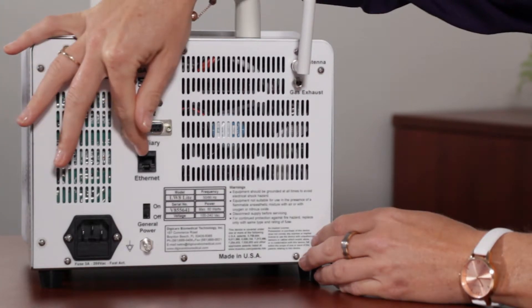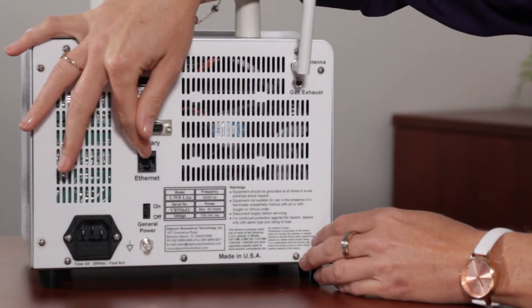The Ethernet. This is a hardwire connection. So if your monitor doesn't have the wireless installed, you have to hardwire the monitor using this Ethernet connection.